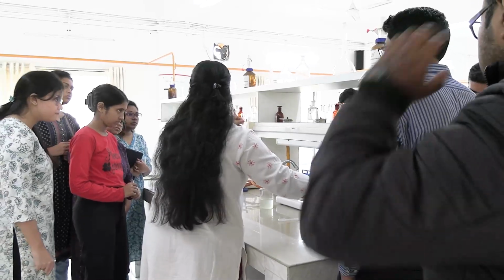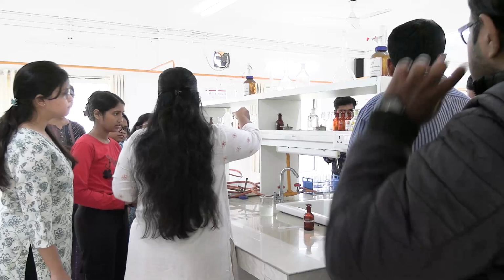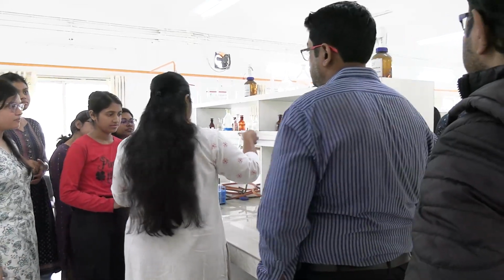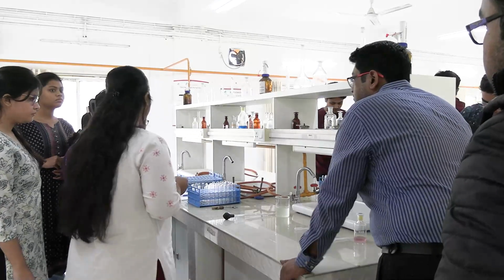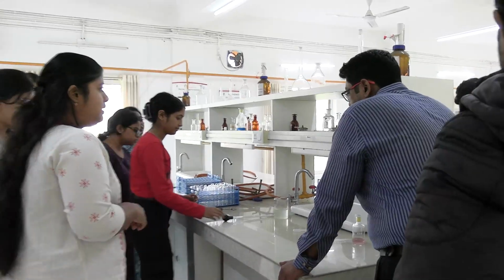See the cloudiness? This is also denaturation, that is also denaturation. That's it. Any one of you perform the heat acetic acid test and any one of you perform the sulfosalicylic acid test.